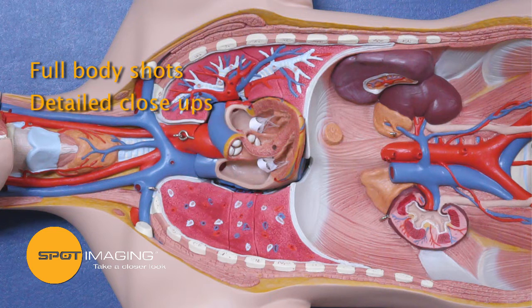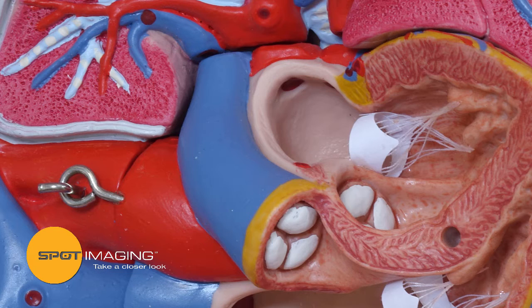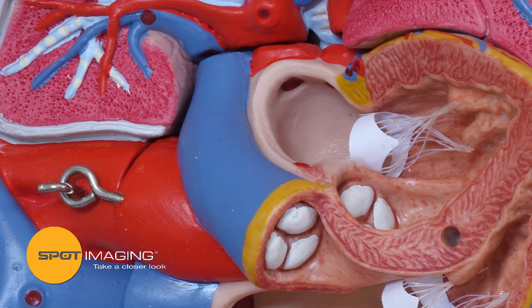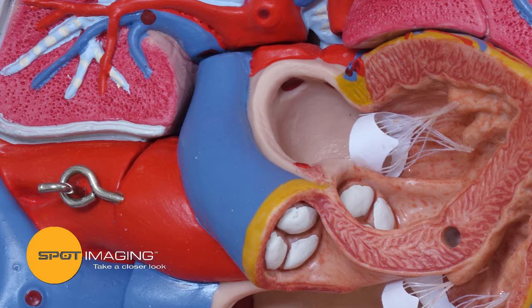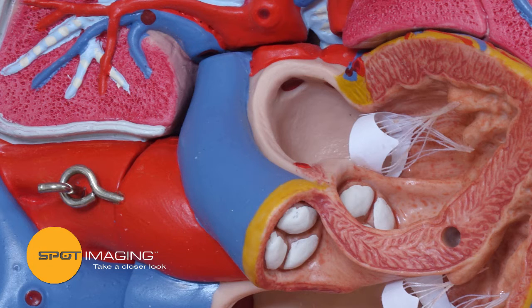Furthermore, it can continue to hold these positions for as long as your procedure may last, ensuring a complete set of images to complement your written report.